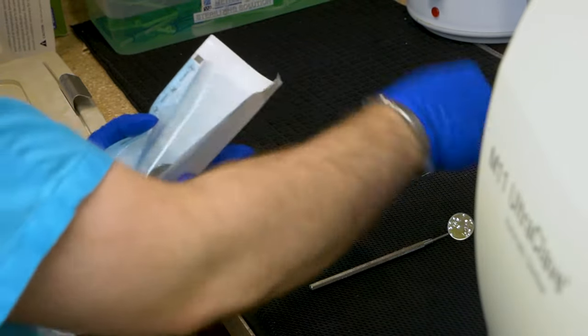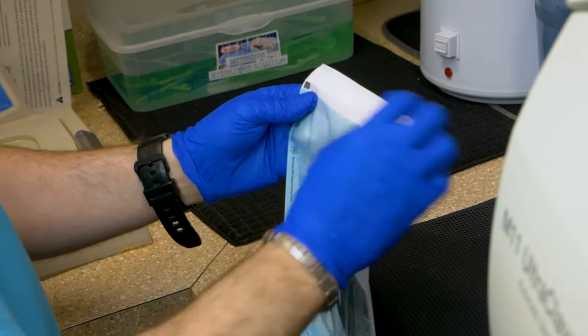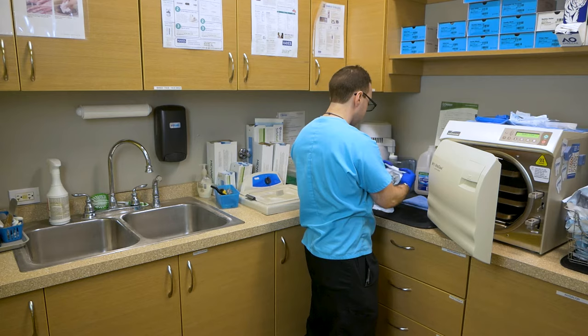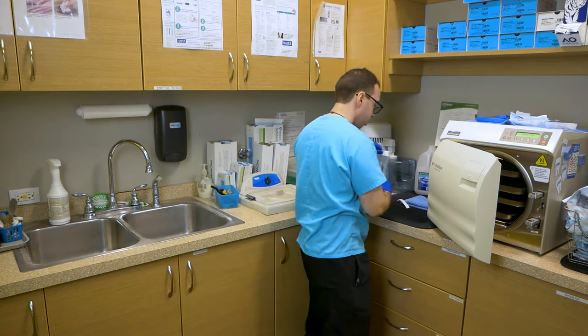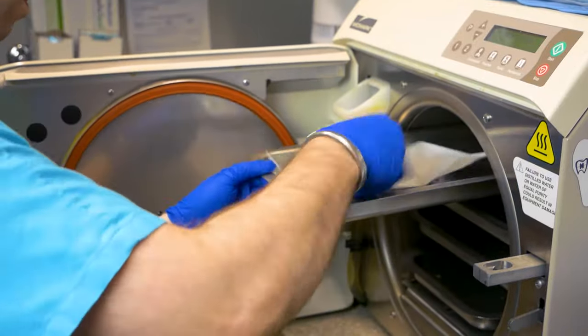The most common ones are adjustment and bonding pouches. These pouches are then put into the autoclave. The autoclave heats the pouches up to about 275 degrees and compresses them to about 29 psi.